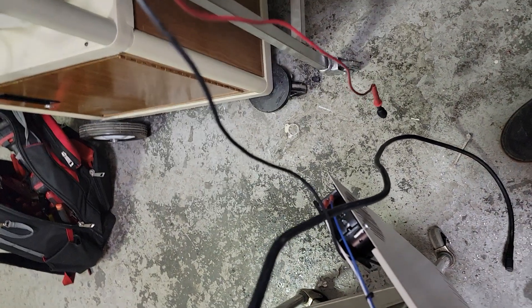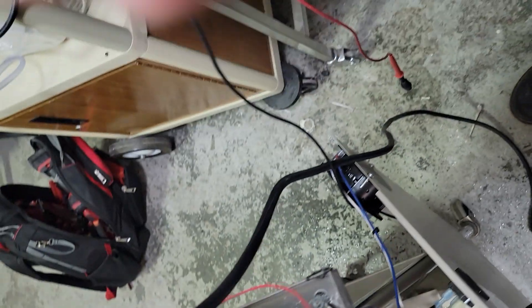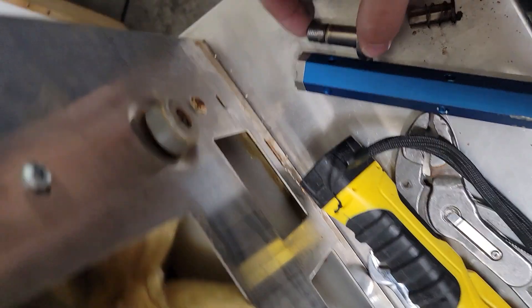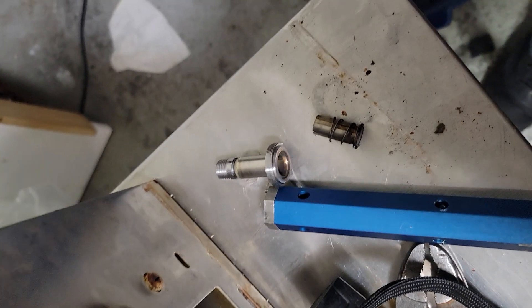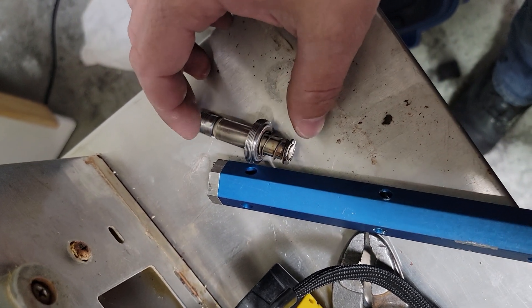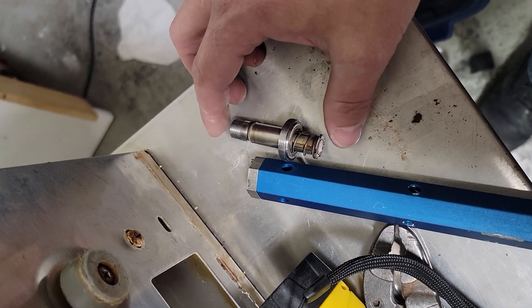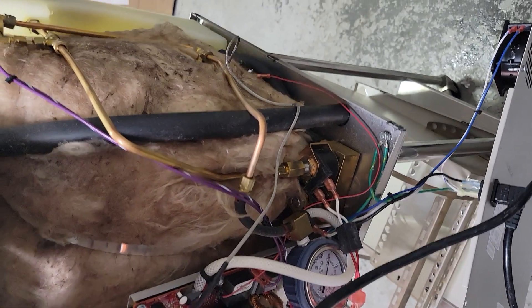There's our vent solenoid — it's got some heat damage. Inside the solenoid you have the stem and the plunger — this moves up and down. The other piece is just a magnetic coil: it energizes, creates a magnetic field, which pulls the plunger up into the stem. Sometimes it opens it, sometimes it closes it. Remember, the air outlet solenoid is normally open.